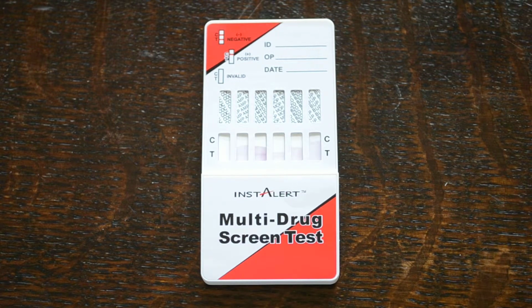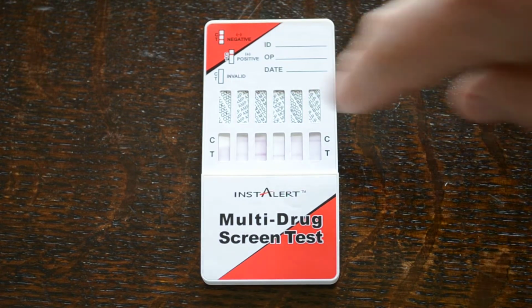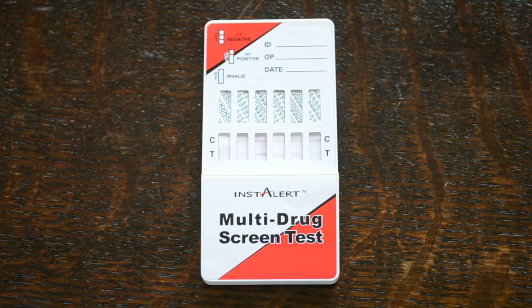And what you'll see developing within these areas here is the pinkish dye osmotically being sucked up towards the top of the panel, and you'll see developing almost immediately some test lines, and then as it reaches the top area where the coding is, you'll see the control lines forming as well. Now what you will notice is the colour density and saturation of the test line varies between different tests. It's absolutely normal. And the control lines, again, colour density and saturation of those will be very similar if you wait for the full 8 minutes of development.